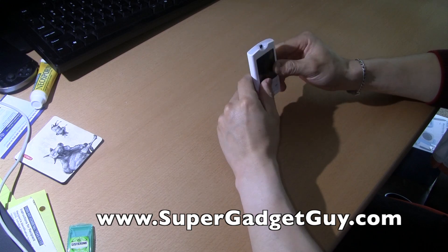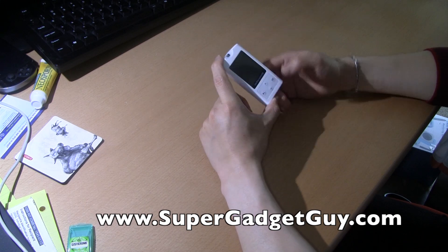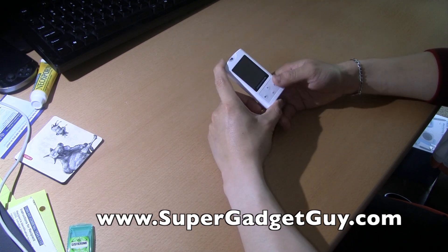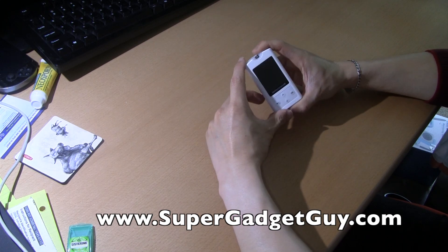I have several issues with the overall design of this meter. Accuracy is pretty good — I mean, they're all okay. They're not dead-on accurate, and I don't know why. I guess that's just the limitation of the technology. I hope they improve this greatly.